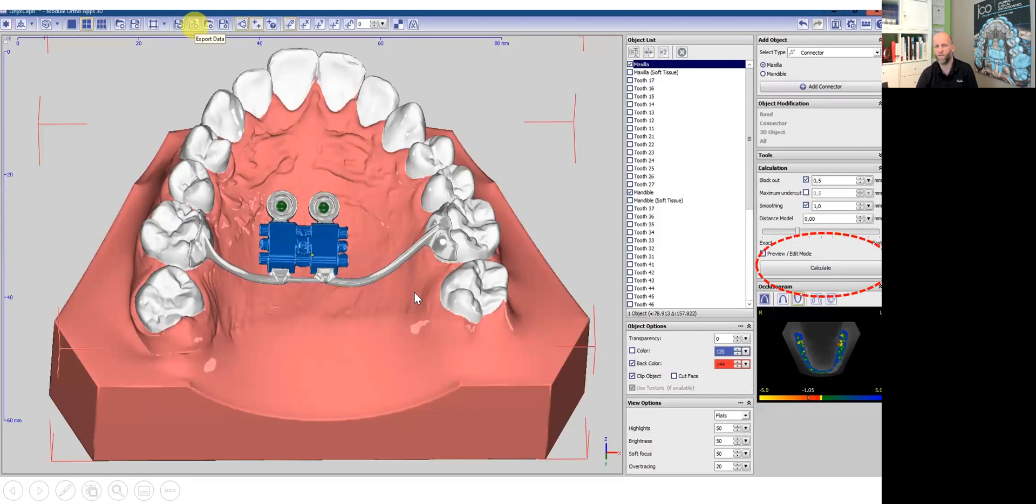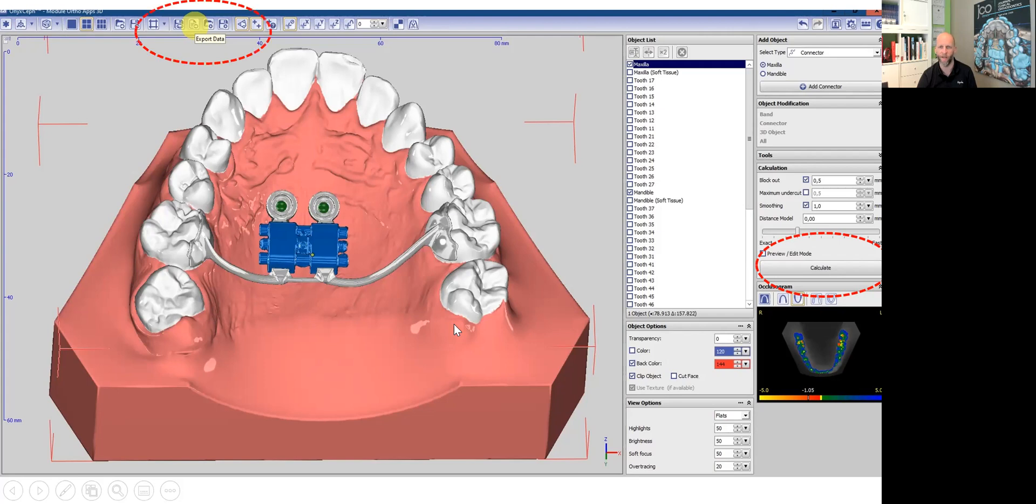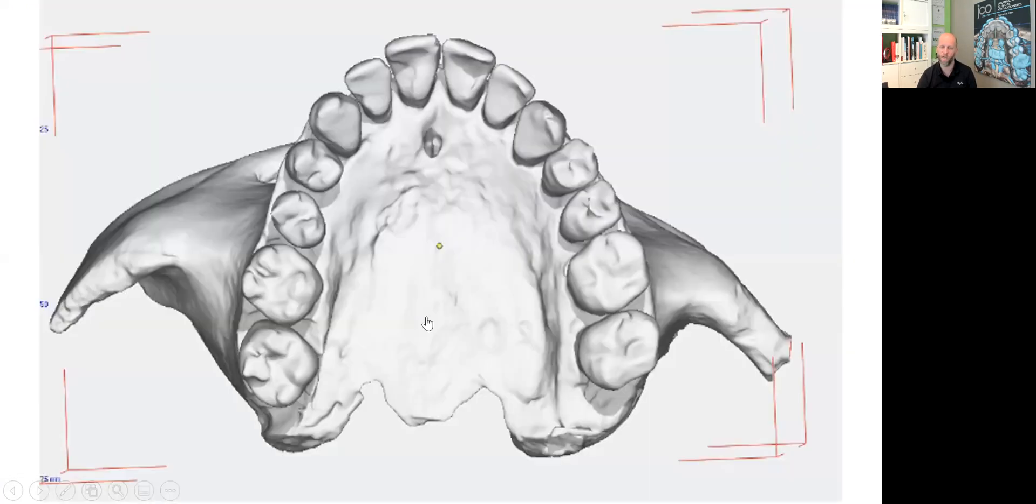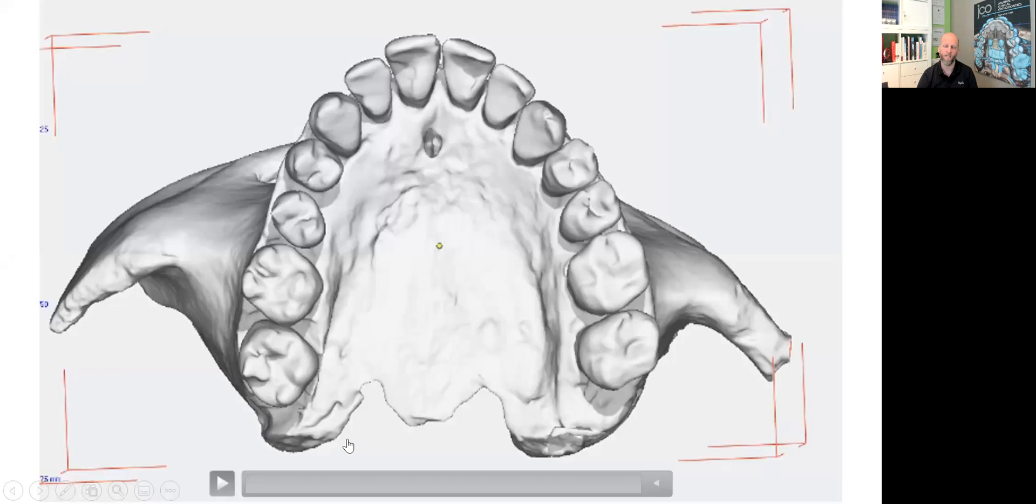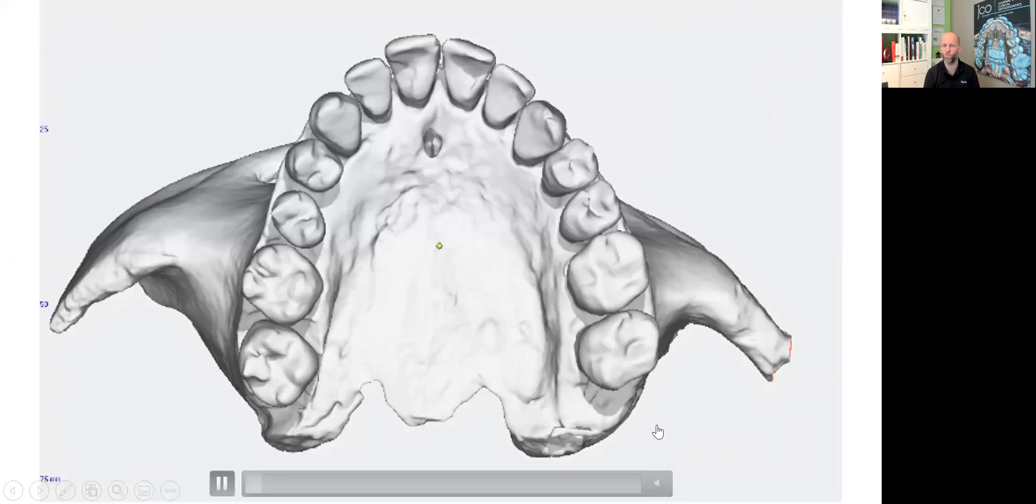And in the final step, I click calculate and then my design is rendered. And after I have rendered it, I can export it. And the whole process is now shown here in a very short video.